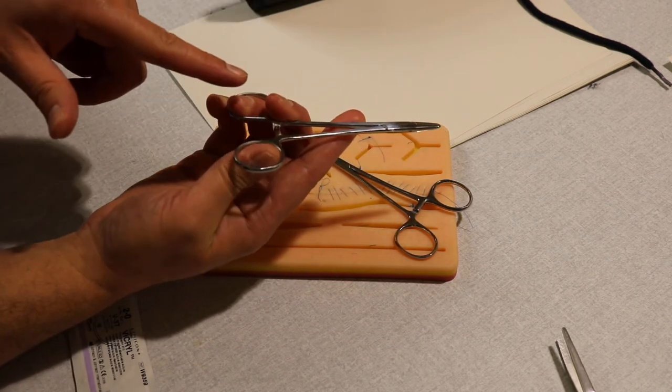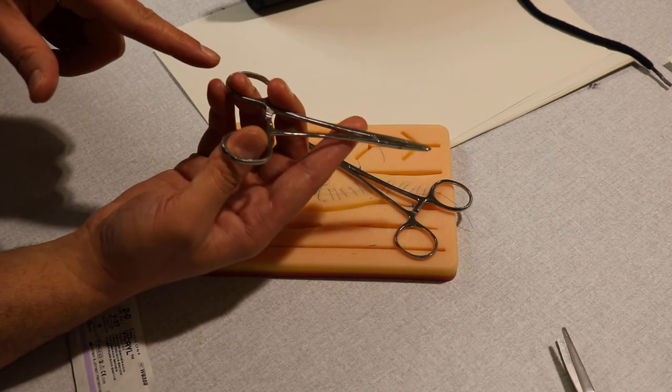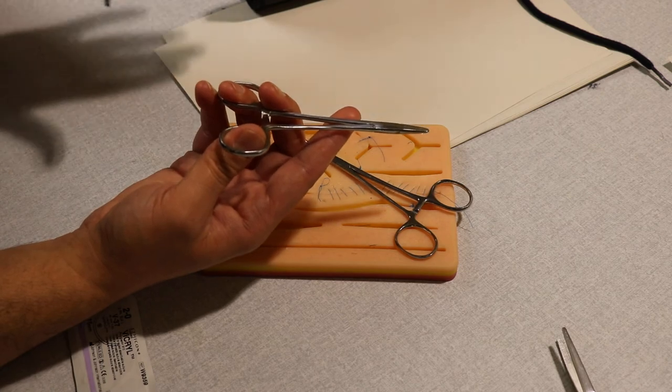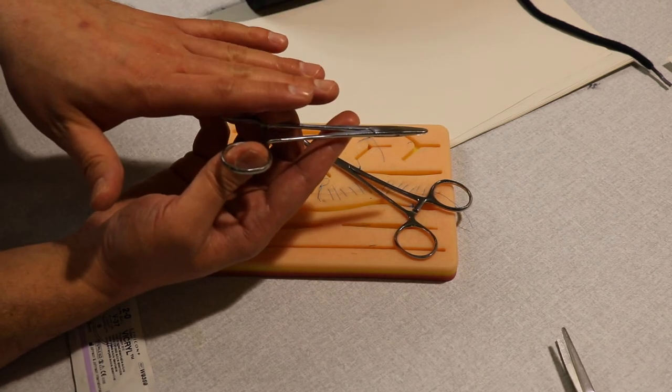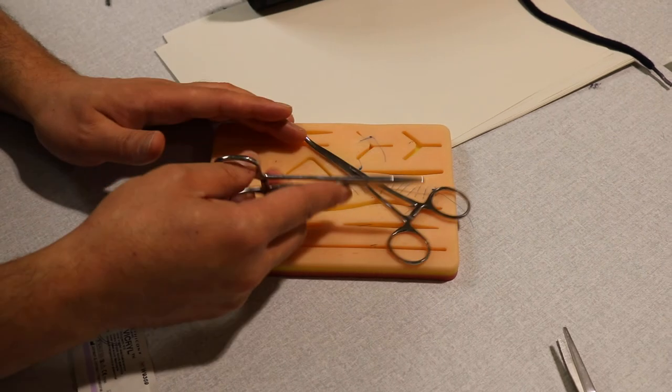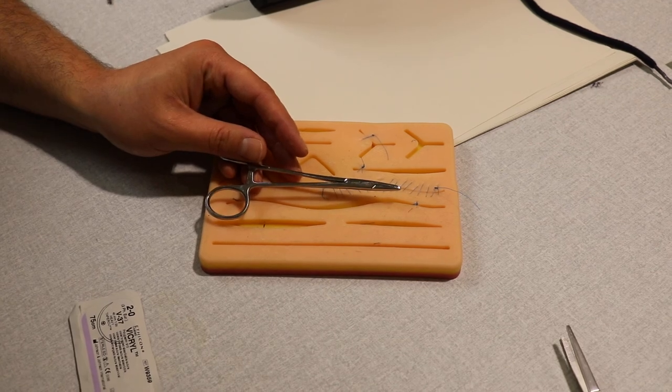Close by pushing towards the other limb. Open by stabilizing this down and pushing this up to the ceiling, like this. Is that okay? Let's practice.